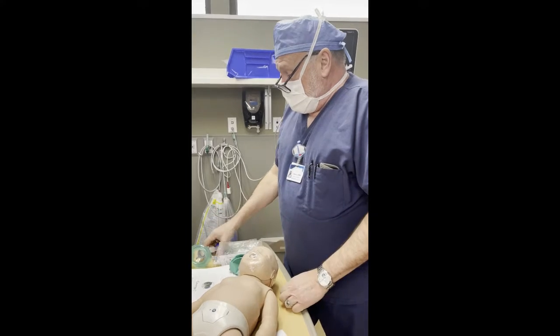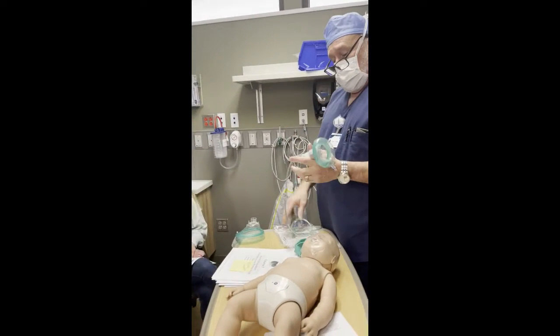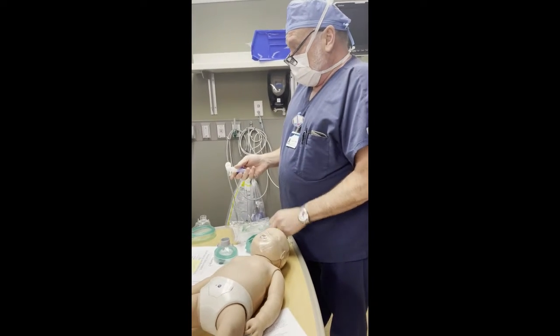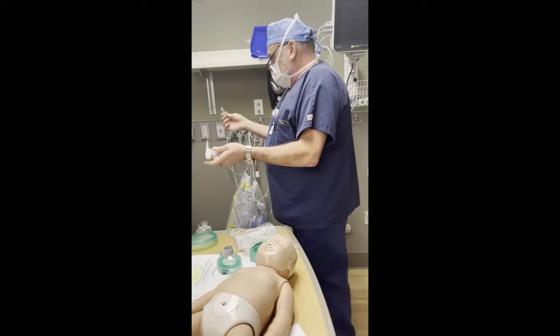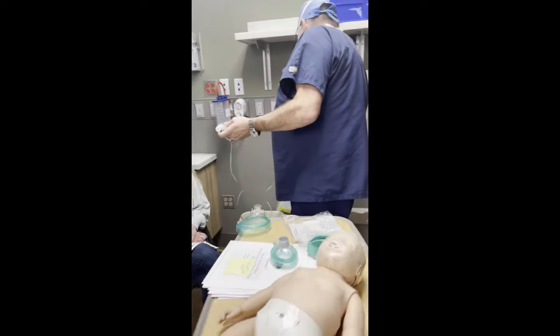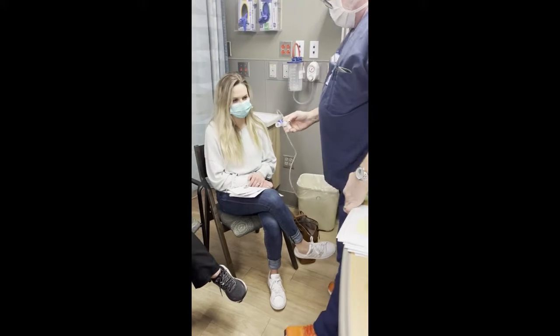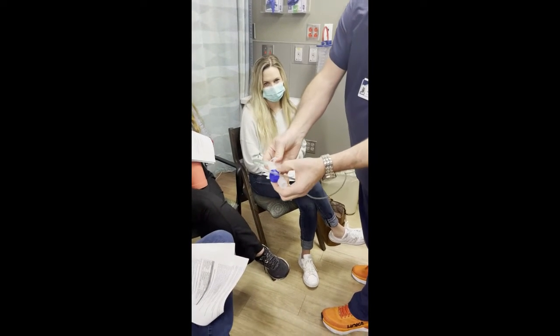So we break it with this device called the Baby Safe. Now I'm going to show you how to put it together. And I'm going to use an adult mask so I can show you how the thing works. So it has tubing on it. Everybody see the tubing? It connects to the oxygen at the wall. And it has what's called a pressure relief valve. So it's just closed there.